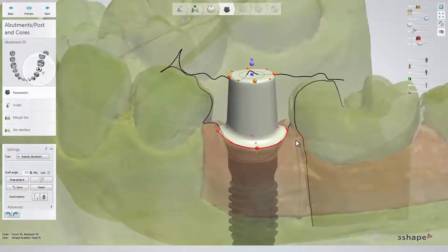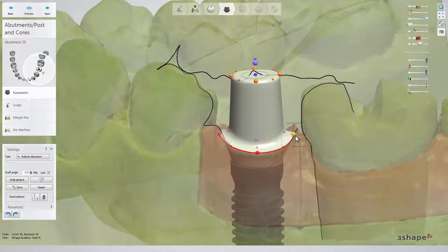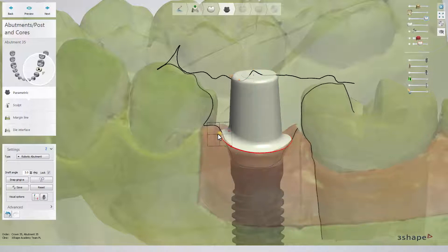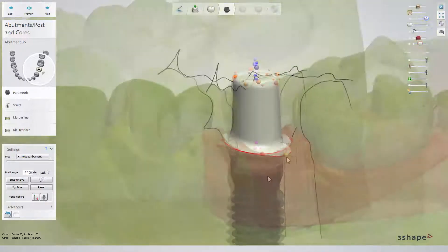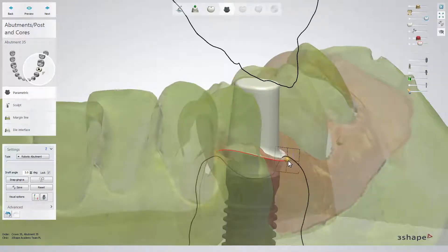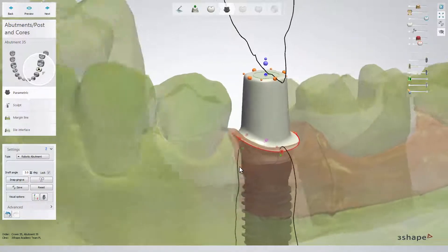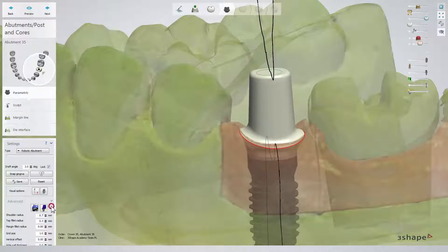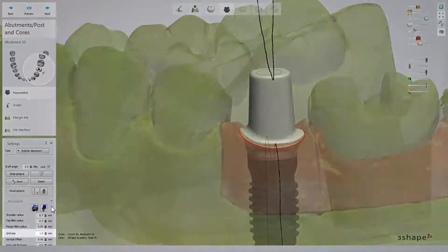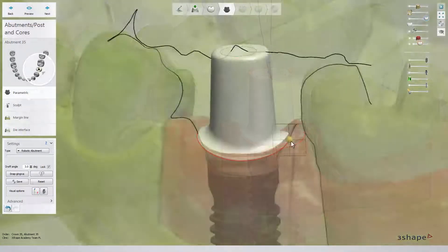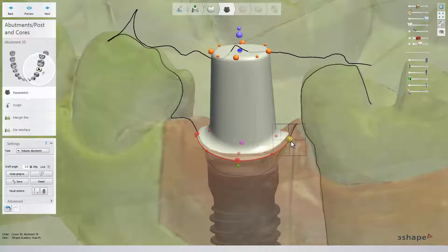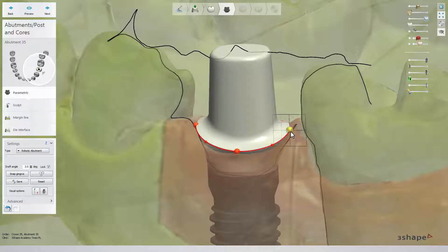It is helpful to work on translucent models according to visible contour lines. Start with orange spheres to set the abutment edge on the required level according to the gum edge — for example, 1 mm subgingivally. The activated spheres show a grid which will help you to measure a distance. The size of the grid can be set in the advanced settings. Point at an orange sphere and scroll the mouse wheel to change the shape of the emergence profile. Click on an orange sphere and hold Shift to move all at the same time.